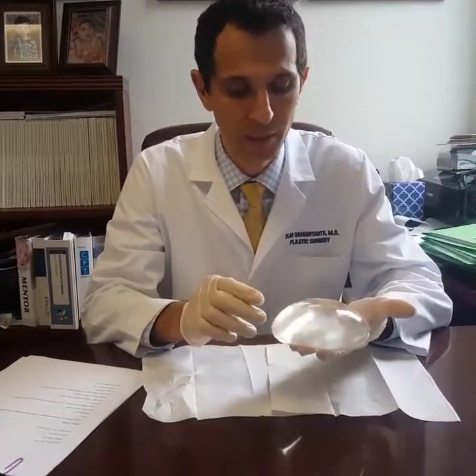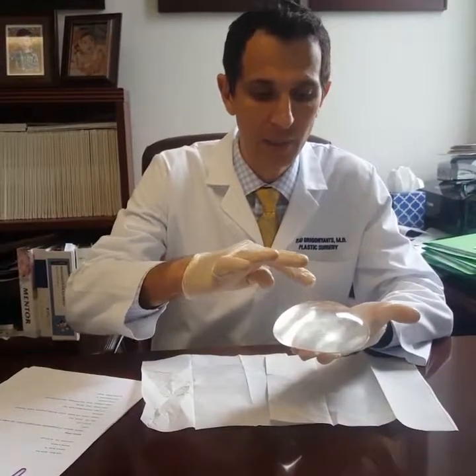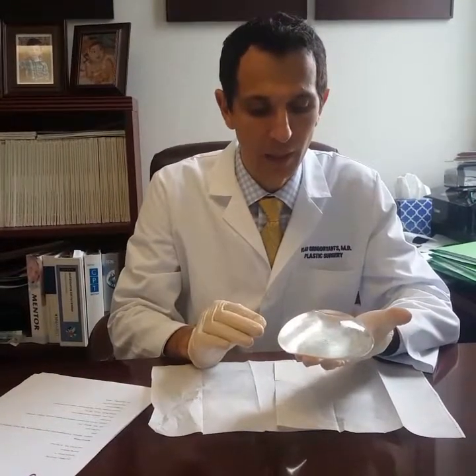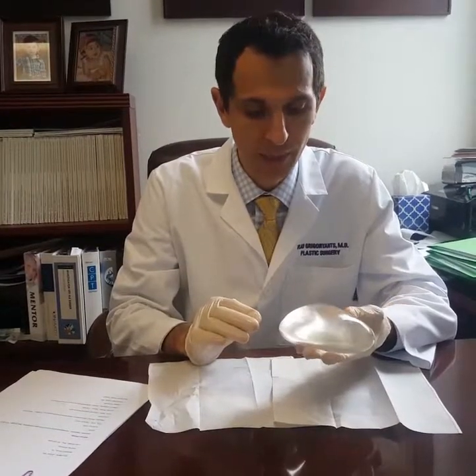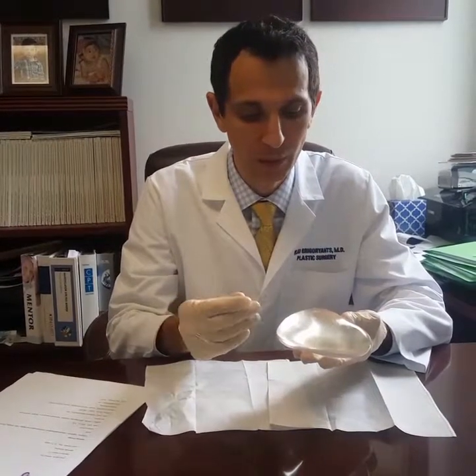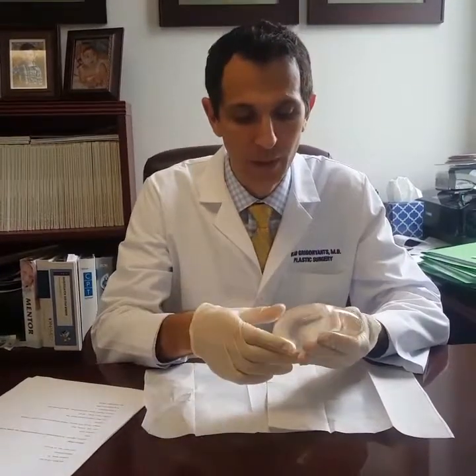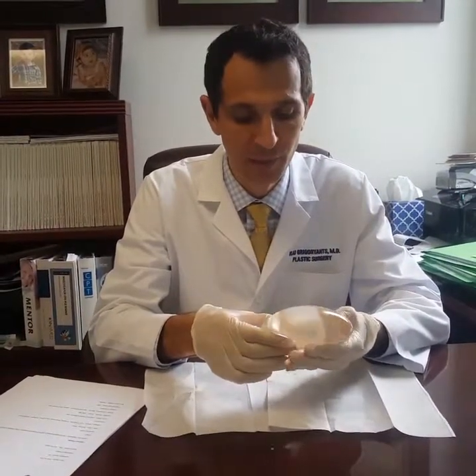The difference between these implants and older implants is that these implants are filled a little bit more — there's no dimpling in the middle. The gel is cohesive inside. It's not like thick oil, which is what we had many, many years ago, and those implants most of them leaked after 10 to 15 years.